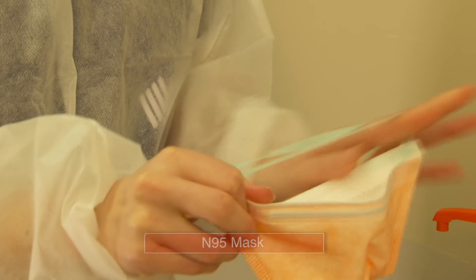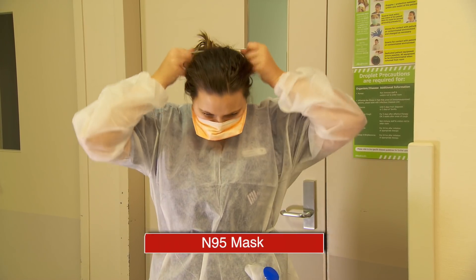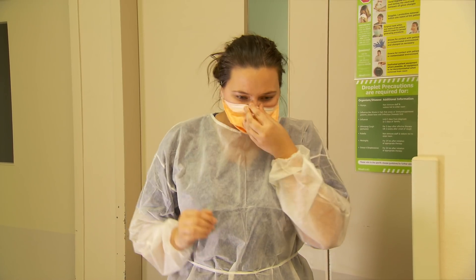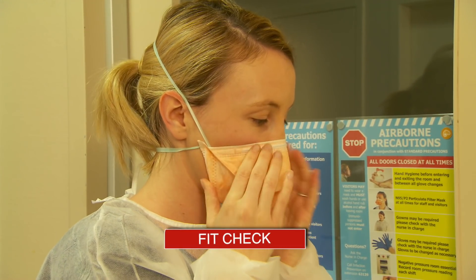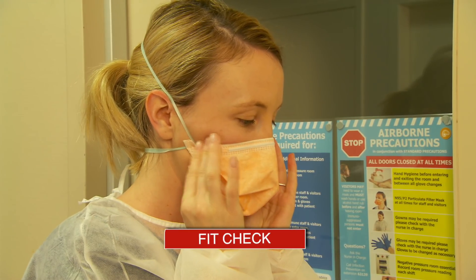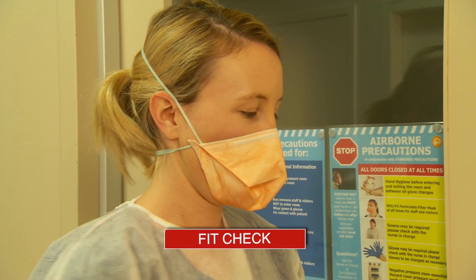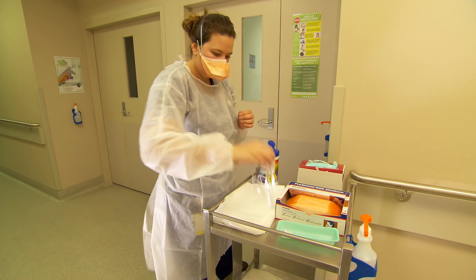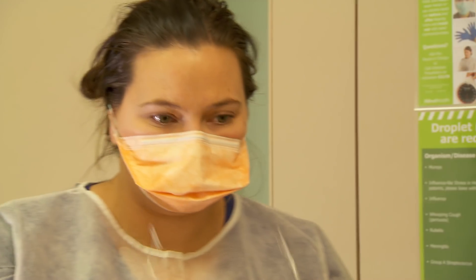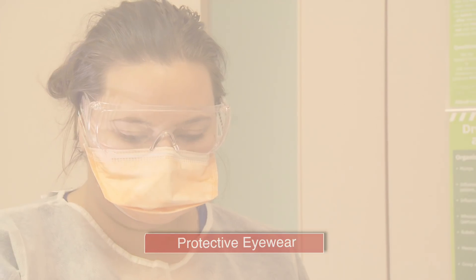An N95 mask should be applied by separating and lifting the two bands over your head, then moulding the nose piece to ensure a secure facial fit. To perform the fit check, with your mouth slightly open, inhale and exhale. You should be able to see the mask collapse slightly on inhalation and expand upon exhalation. If fogging of the protective eyewear is present, readjust the mask and repeat the fit check.